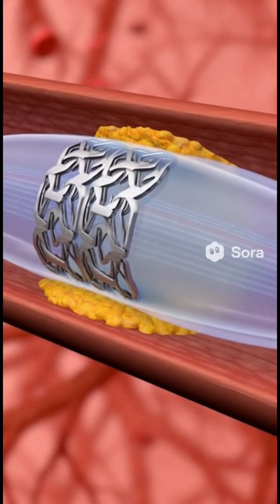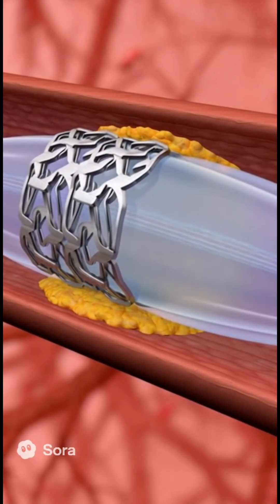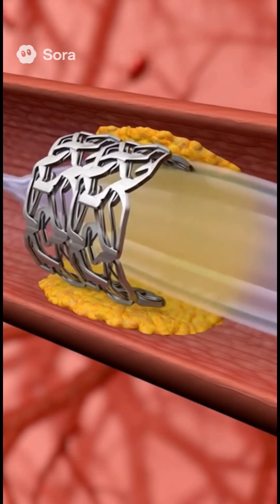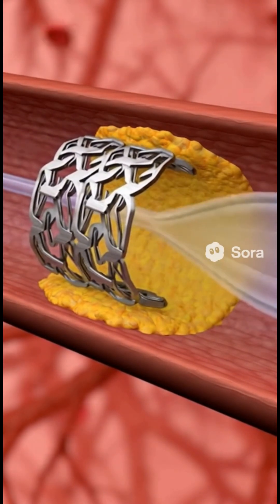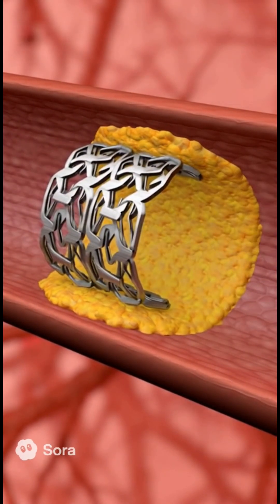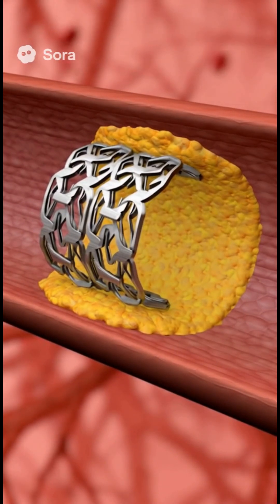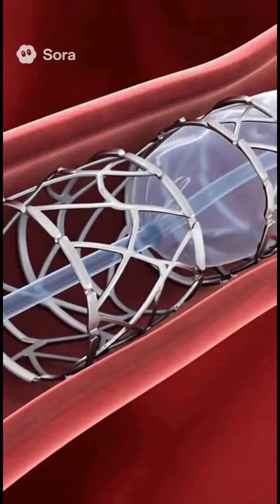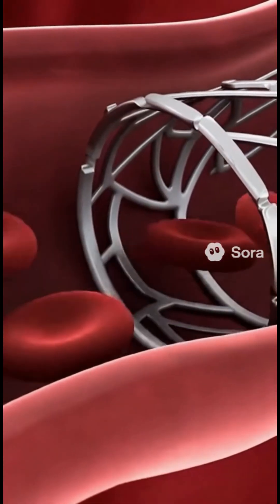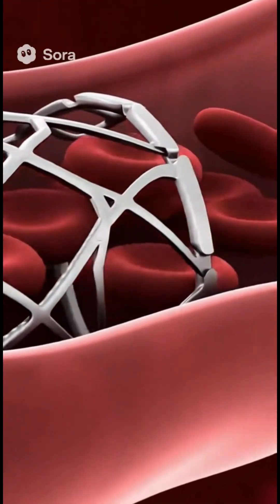Once in position, the balloon inflates, pressing the plaque outward and expanding the stent. The stent locks into place, widening the artery and restoring blood flow. The balloon is then removed, leaving the stent to keep the artery open.